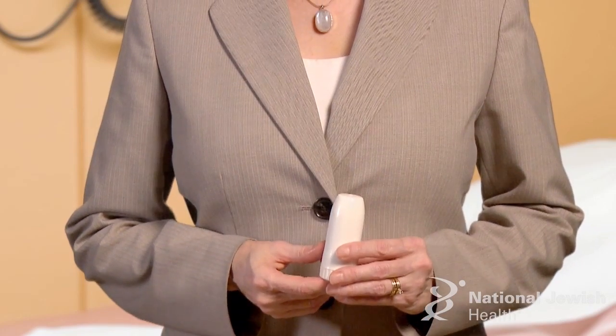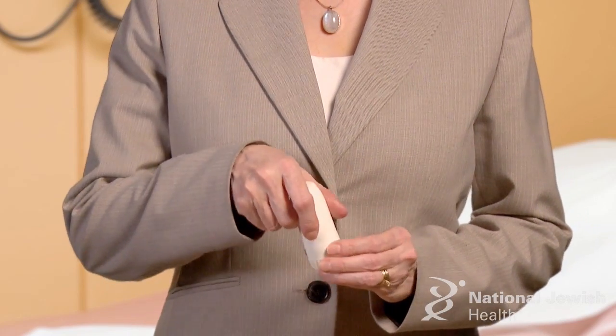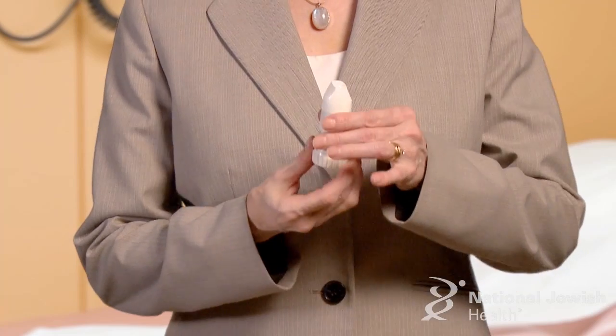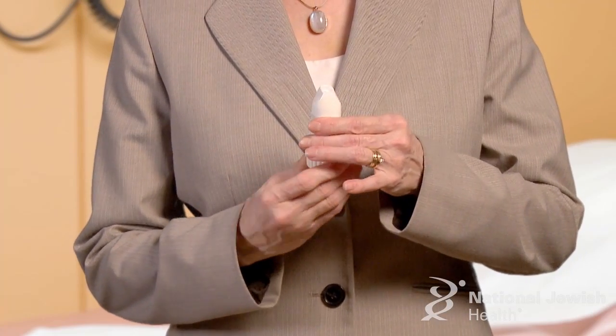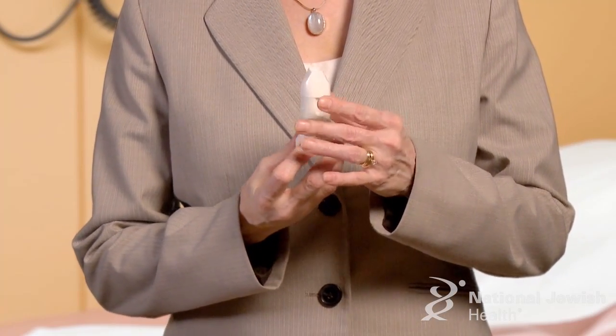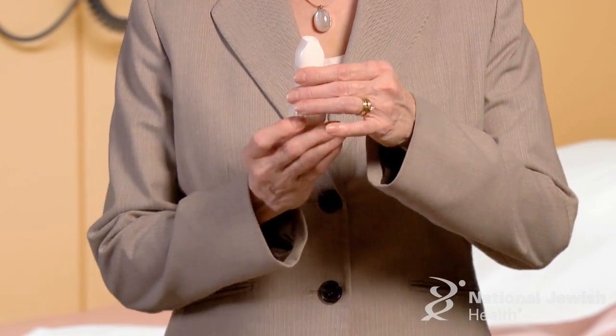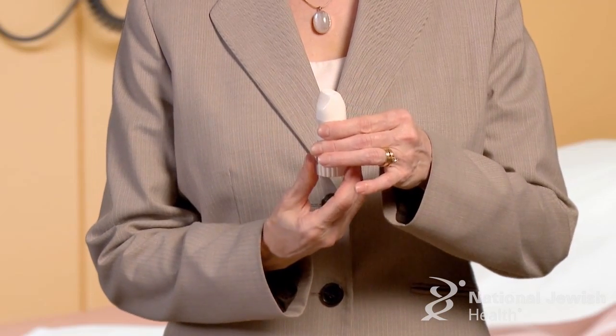Before you use the Flexhaler for the very first time, you will need to prime it. To prime the Flexhaler, twist off the cap and hold the device straight up. Turn the bottom to the left and then to the right — you will hear a click. Now repeat this step. You do not have to prime the Flexhaler any other time.